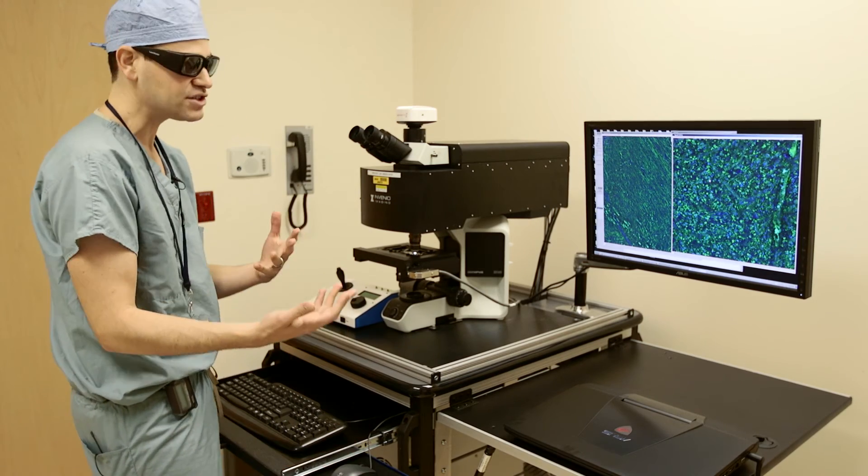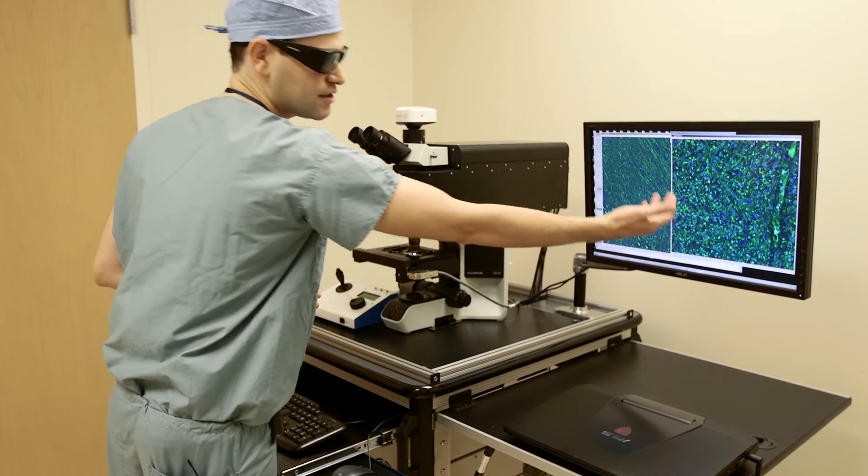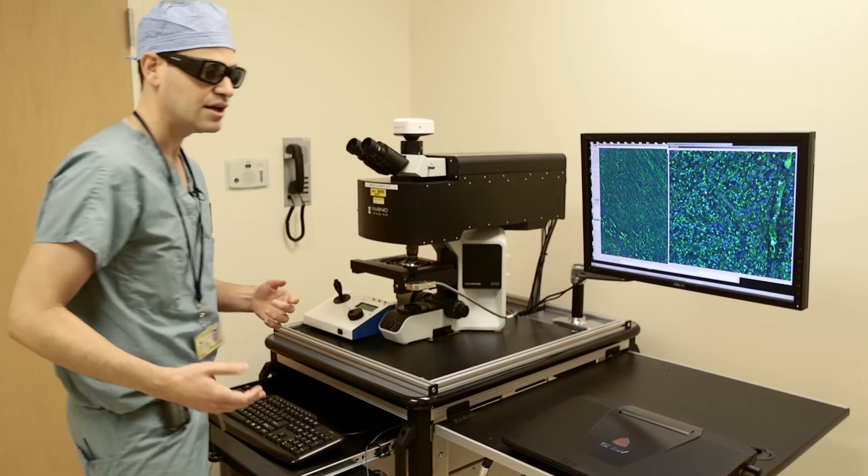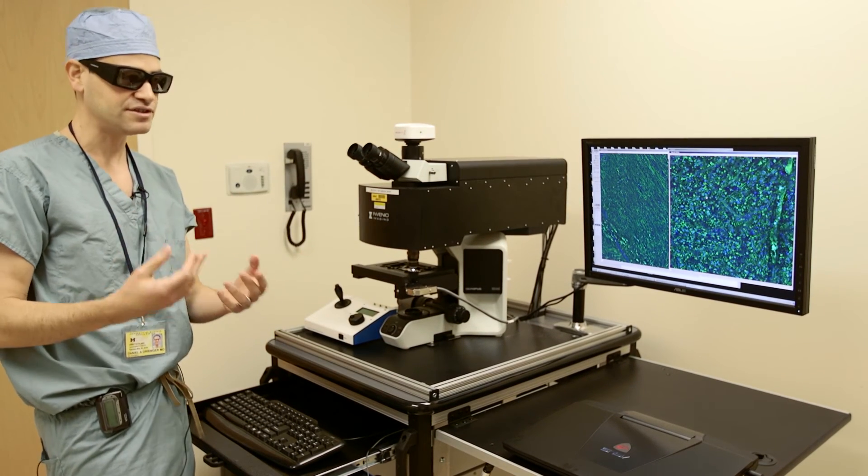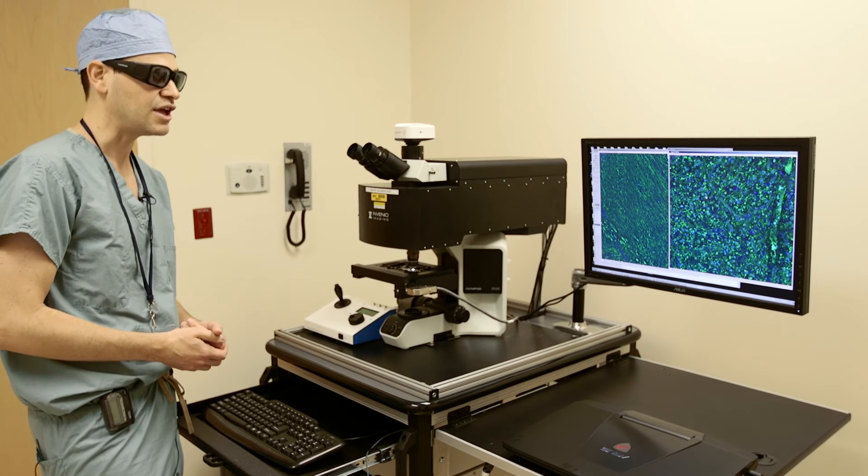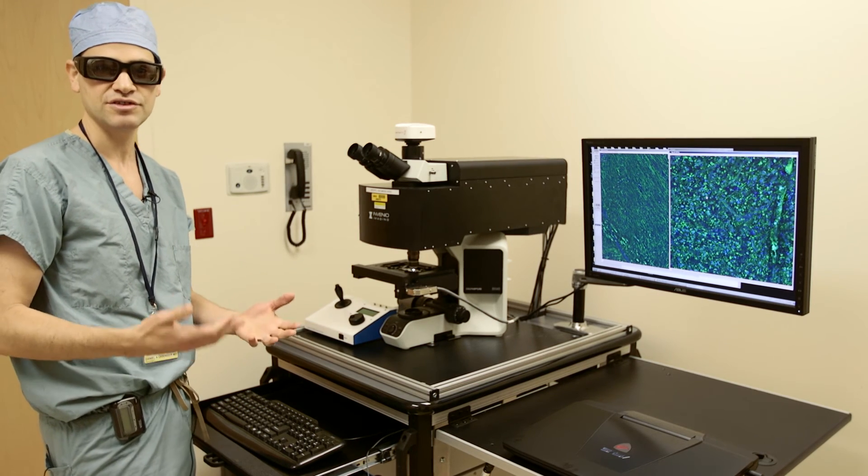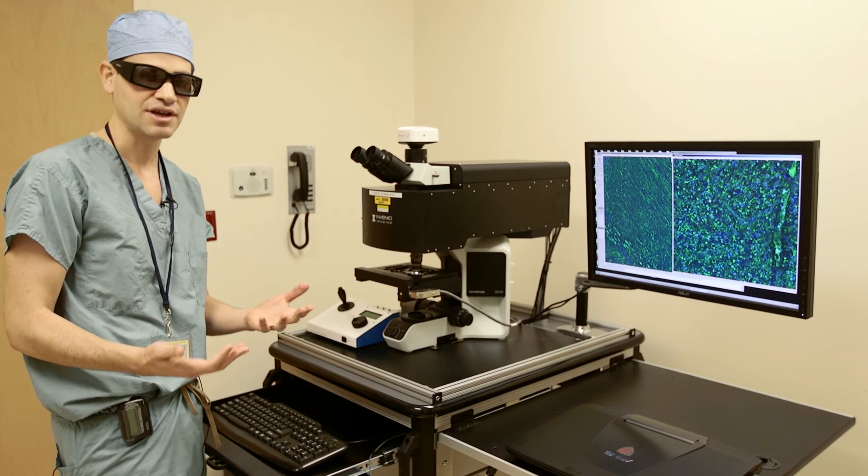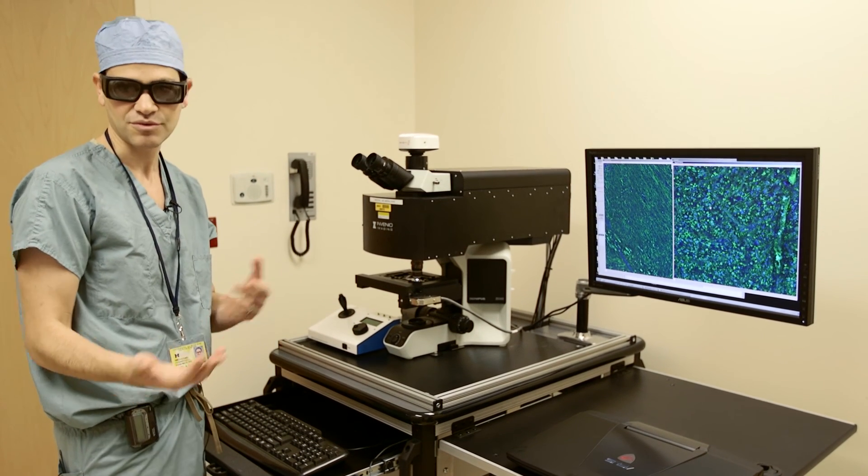And so you can imagine how we would be able to differentiate this tissue from this tissue whereas macroscopically these pieces of tissue actually look relatively similar. And that's the basis for the difficulty in brain tumor surgery of differentiating the tumor from the normal brain.